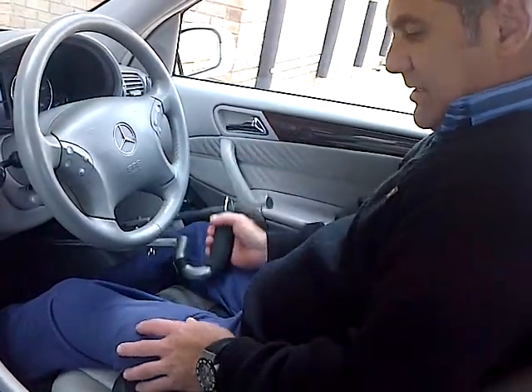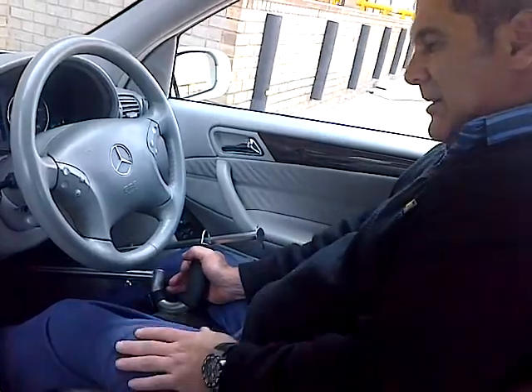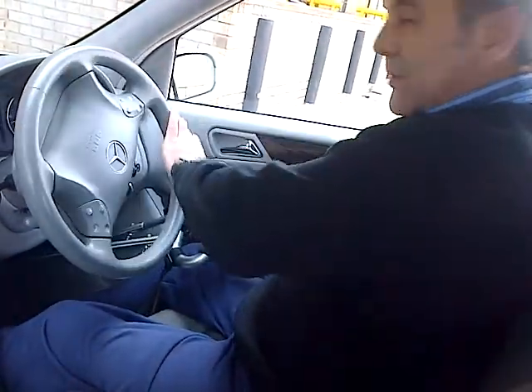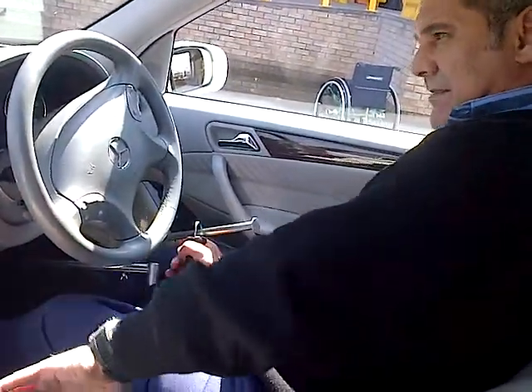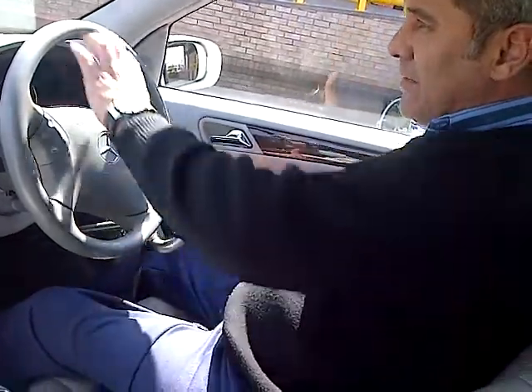Using Mobi driver hand controls is as easy as one, two, three. Press down the brake, put your car in gear — in this case, reverse. Steer in the direction you want to go, then press down with your thumb slightly on the accelerator just to keep moving. To stop, simply press down on the brake handle.